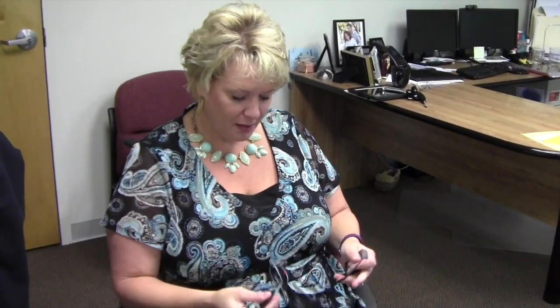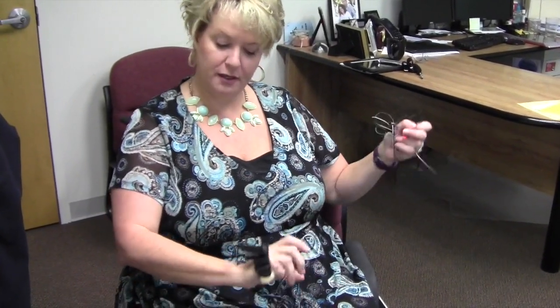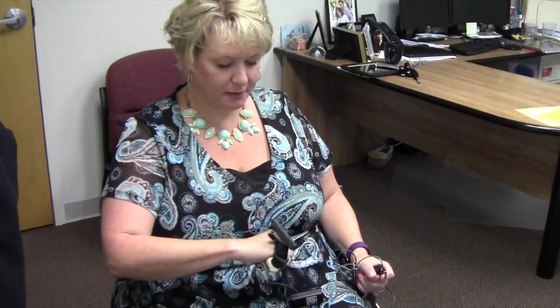They're also safe, so I can actually do this and not harm my eye. There is the head-mounted laser, and this is a hand-mounted laser — the hand mount would go right here, and once I turn it on I take my laser pointer over and I just move my hand to spell things out.